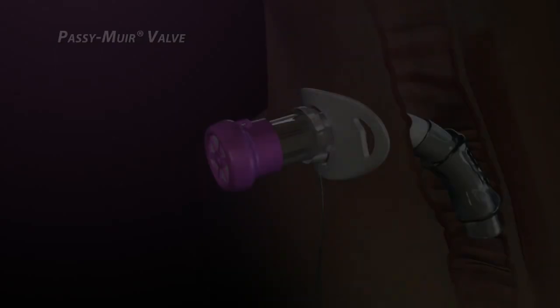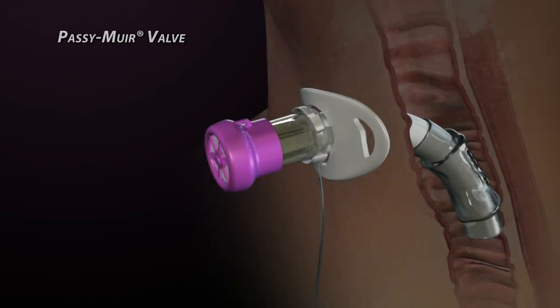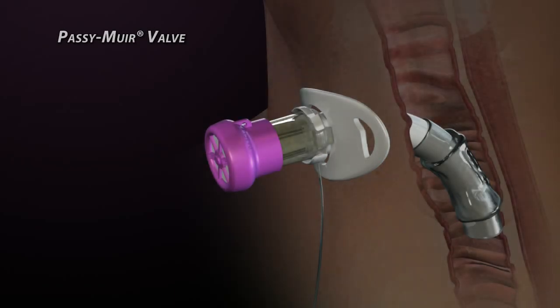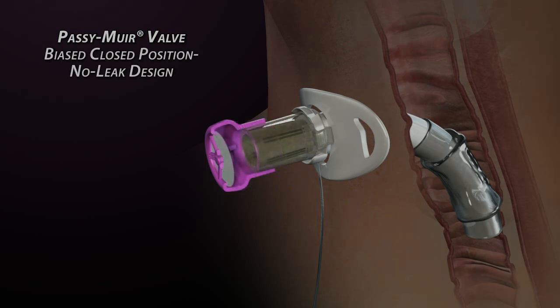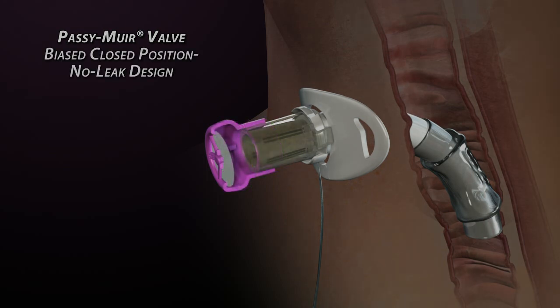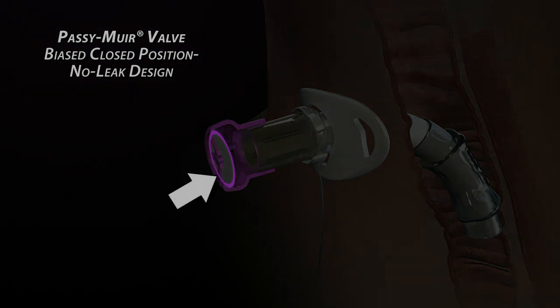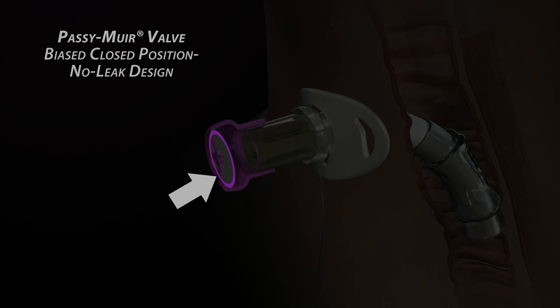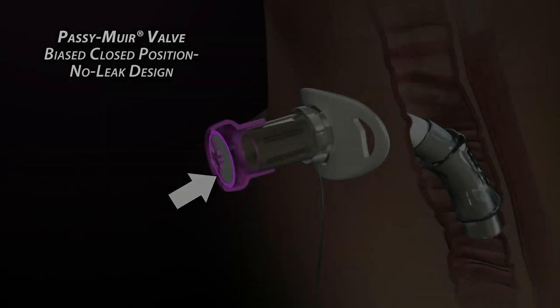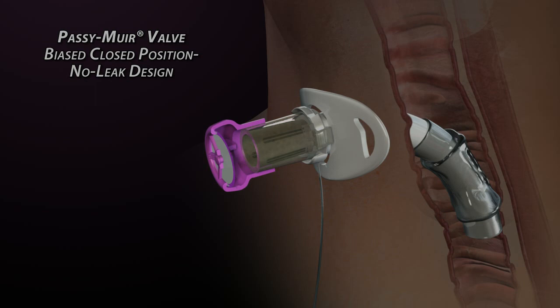The Passy Muir valve has a patented feature that virtually eliminates the possibility of these kinds of problems. This feature creates a closed position, no-leak condition. The membrane's outer perimeter is forced to normally be in a state of compression against a lip inside the valve body. In a relaxed state, the valve is completely sealed, not requiring reversed airflow to close it.